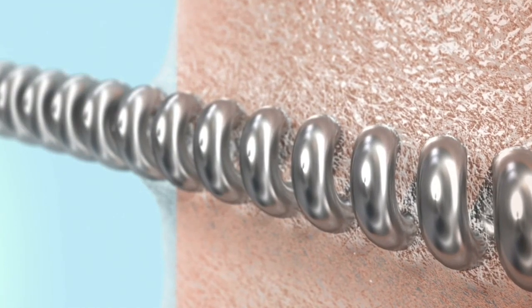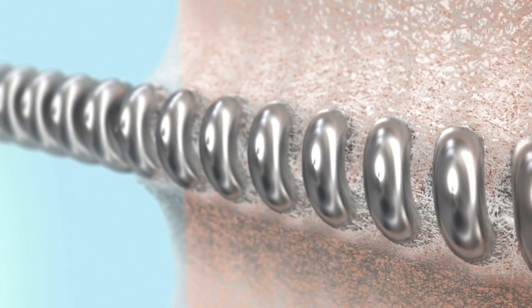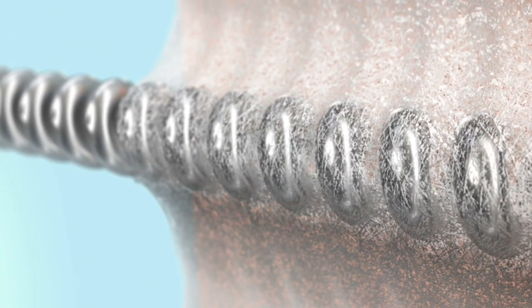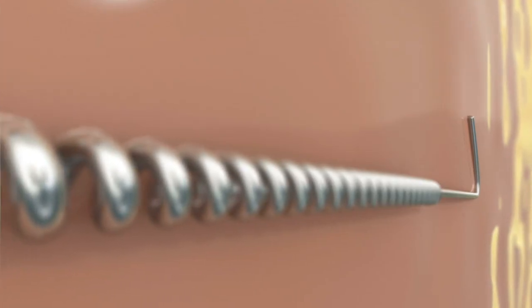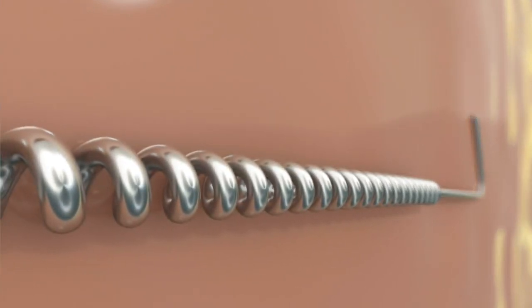The open coil structure of the lead enables the ingrowth of fibrotic tissue at the lead exit site, securing the lead while simultaneously providing a barrier to infectious agents. During limb or muscle movement, the barb stabilizes the electrode distally and the coil flexes to minimize migration.